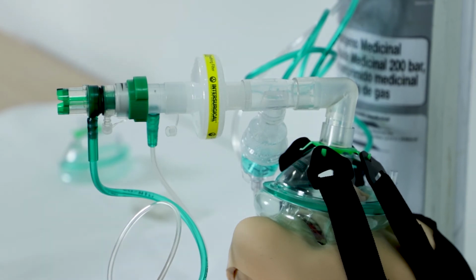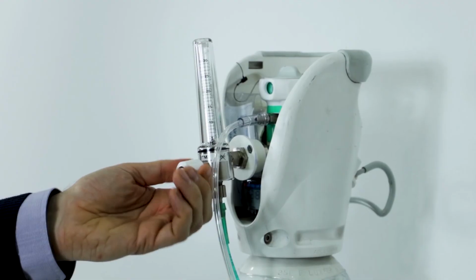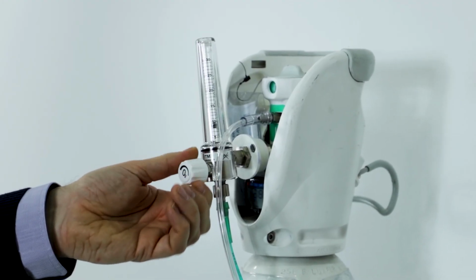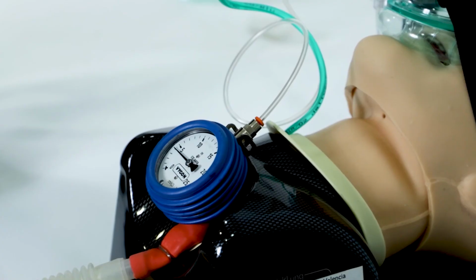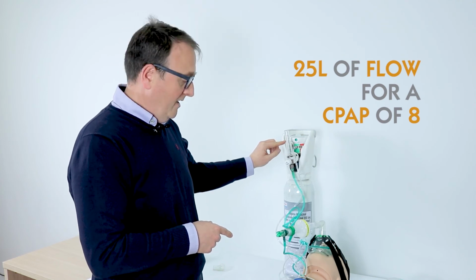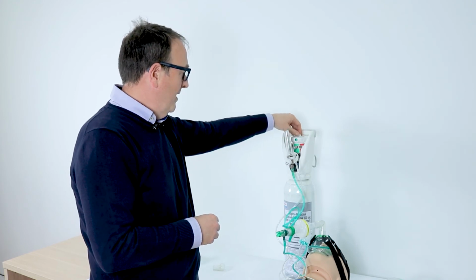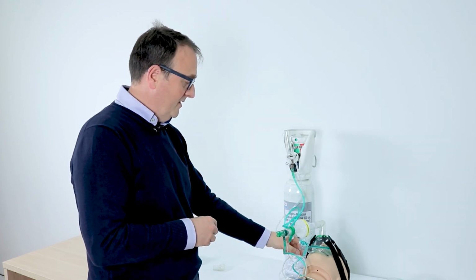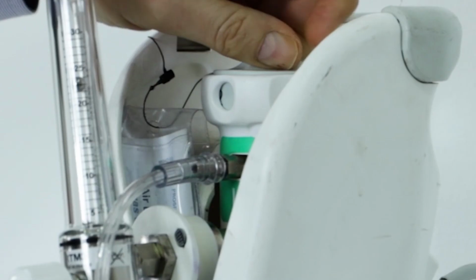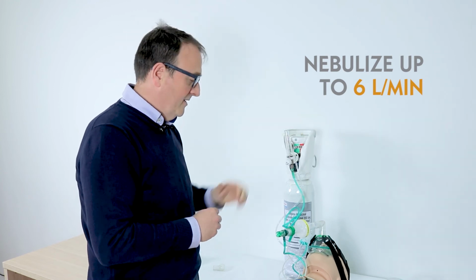And finally, to finish this video, I'm going to show you how to interconnect the T-piece for nebulizing therapy in a lung model. First of all, we need to start with the CPAP. So we have to increase progressively the flow until the pressure desired, for example, 25 liters per minute to achieve a pressure of 8. Secondly, we have to connect the system to the oxygen of the nebulizer and increase the flow up to approximately 6 liters.